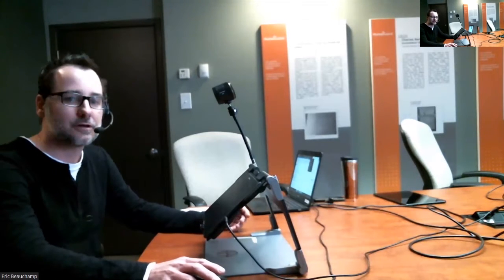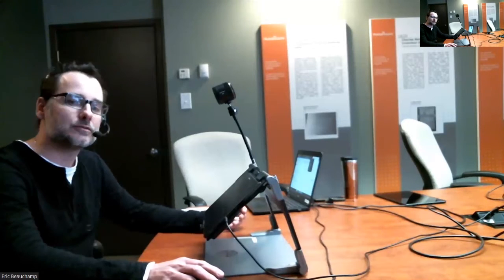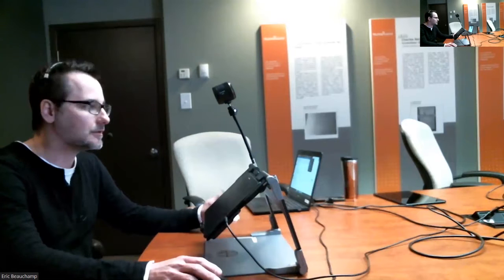I am the Director of Product Management here at Humanware, and it's a pleasure for me to introduce a series of webinars that I'll be giving throughout the year. This is the first one of the series. Today we'll be talking about the Connect Magnifier and the Distance application, how a student in a classroom can switch very rapidly between the two, and how to work with the Connect. I'll show you everything you need to know on the Distance and the Magnifier. And if we have a bit of time, I'd like to extend this webinar by showing you a couple of ways of connecting to a smart board.